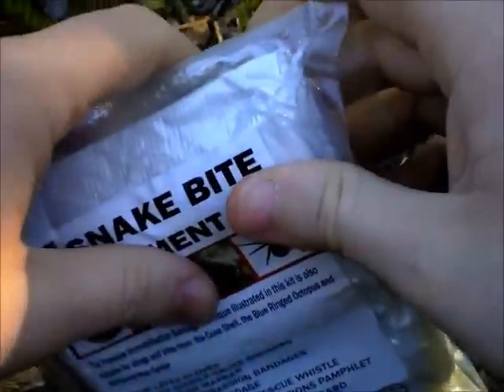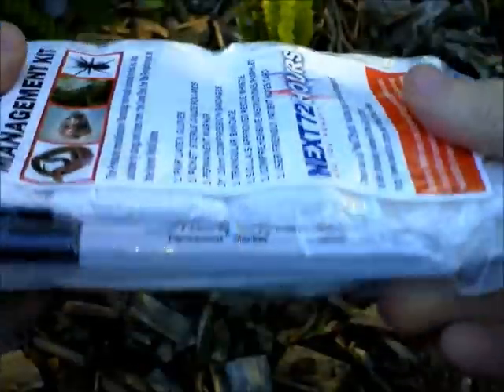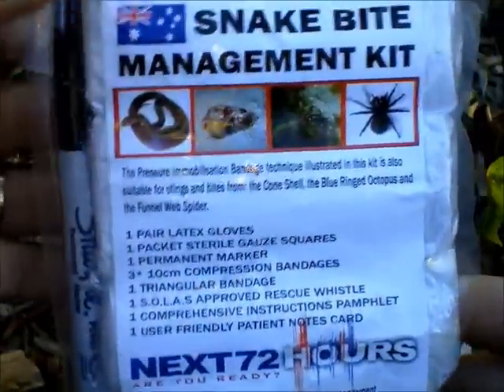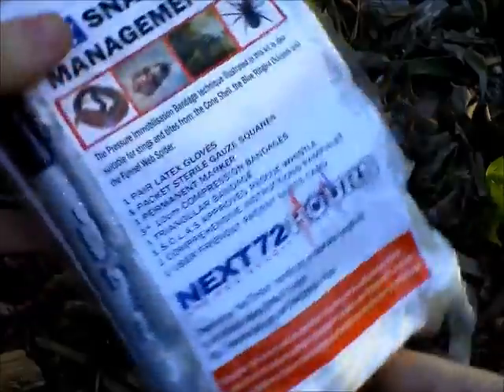The other reason behind vacuum packing is it keeps it in a nice convenient package. As it stands, this fits quite nicely in the pocket of SES pants, cargo pants, or cargo shorts, so you can keep it on your person when you're out hiking for quick access should something happen.